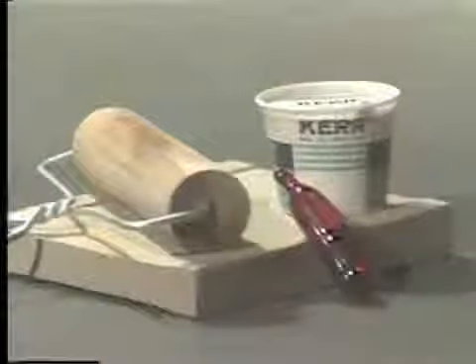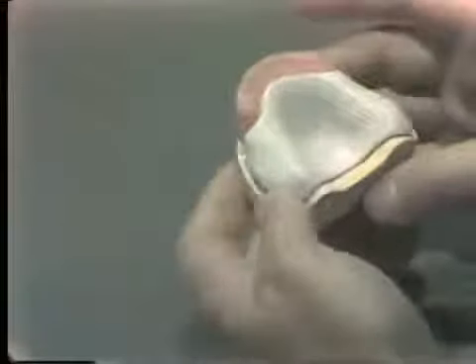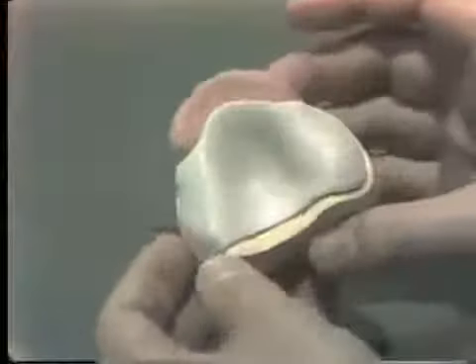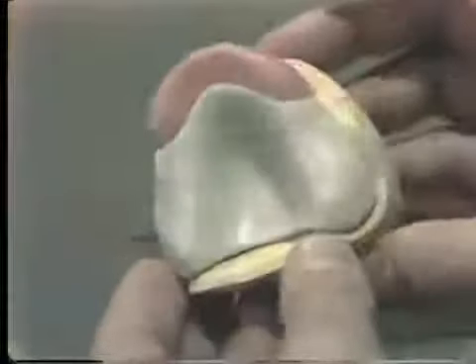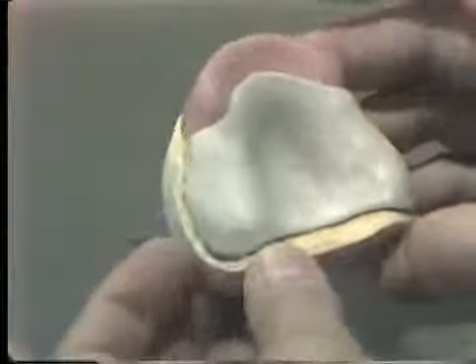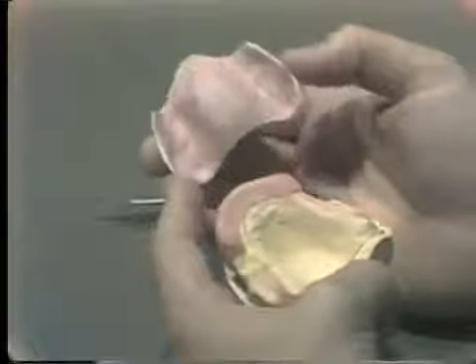The posterior tray is then fabricated and can be trimmed with a red-handled knife around the peripheries, and the peripheries should be short of the pencil line so that these peripheries can be redefined as to their length and thickness when we border mold these peripheries with our stick compound. This first tray is then trimmed with an arbor band, trying to maintain the 28 gauge relief spacer in the tray. This, of course, is removed, as you know, prior to making the wash impression.